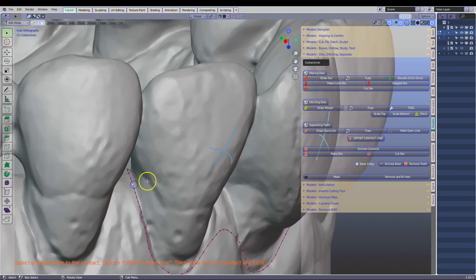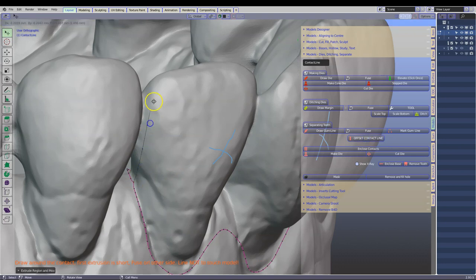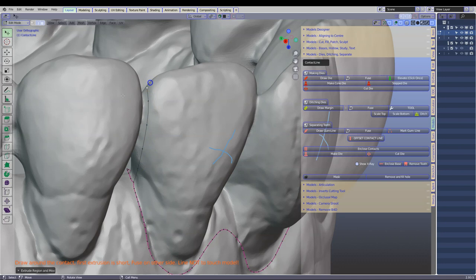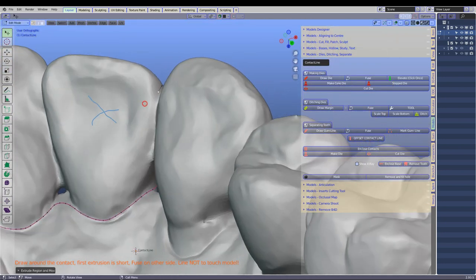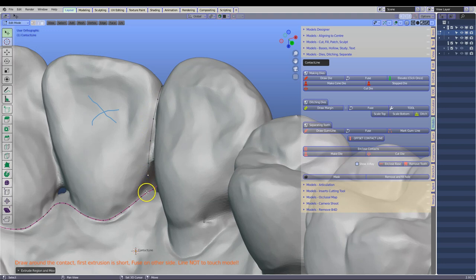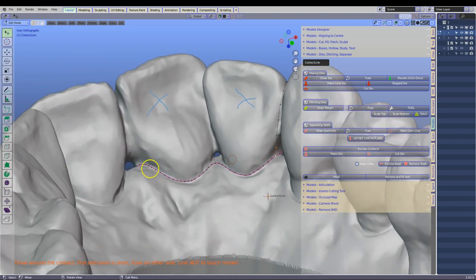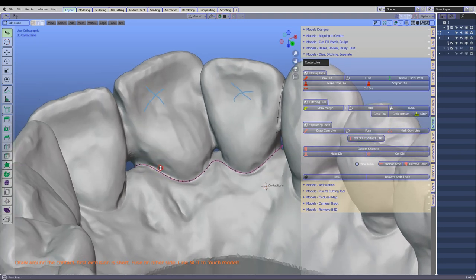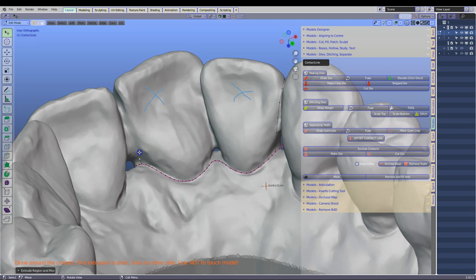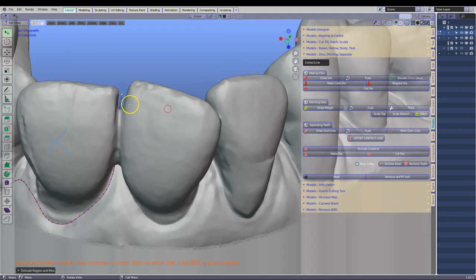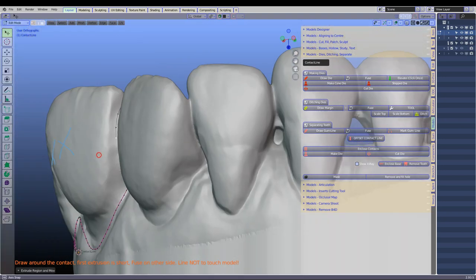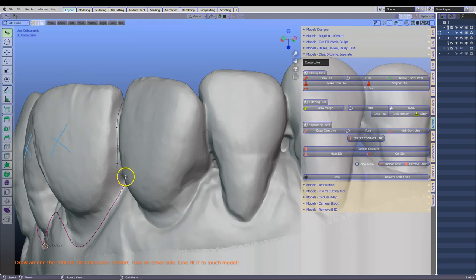Select one of the vertices and we are going to offset contact line. E to extrude and we are going to take this over the contact like that. All the way down and then shift left click and F to fuse. Go to the other side. Select one of the vertices. Offset contact line. E to extrude and you can see how it's been offset. I think it's 0.2 or 0.3mm.